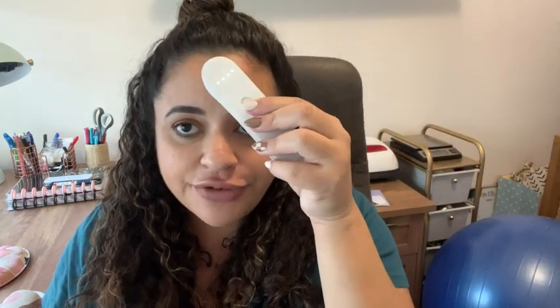So all you have to do is press this button here. You'll see that it'll turn on and put it up to your forehead. Press the button and it'll vibrate to let you know that it's got a reading. So I'm all good and it's that quick and easy.